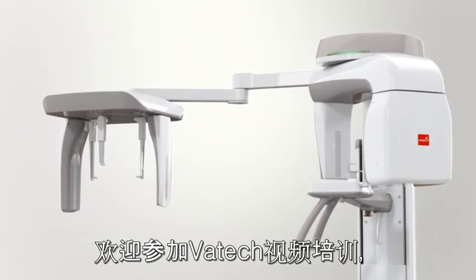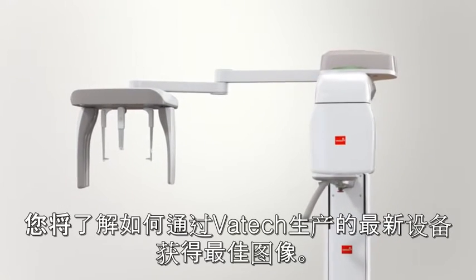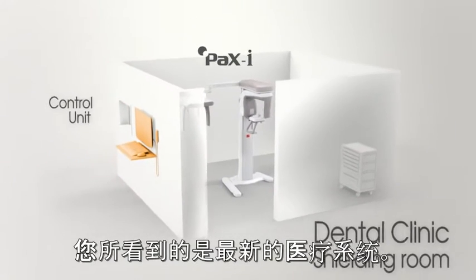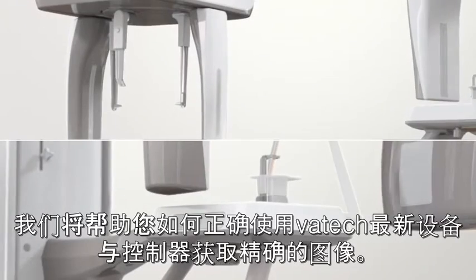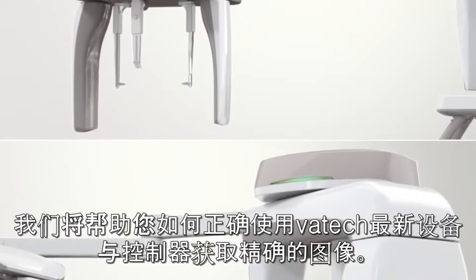Welcome to VaTech video training that shows you how to take the optimum images using the latest product manufactured by VaTech. Now you are watching the state-of-the-art medical system. Our latest system and control units will help you acquire the most accurate images.